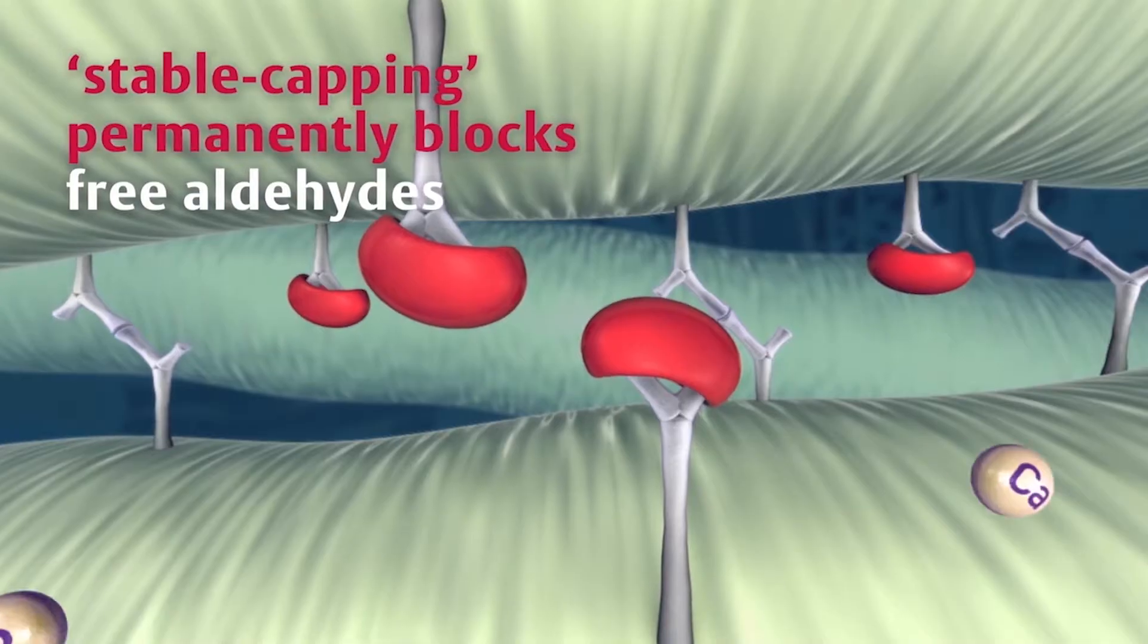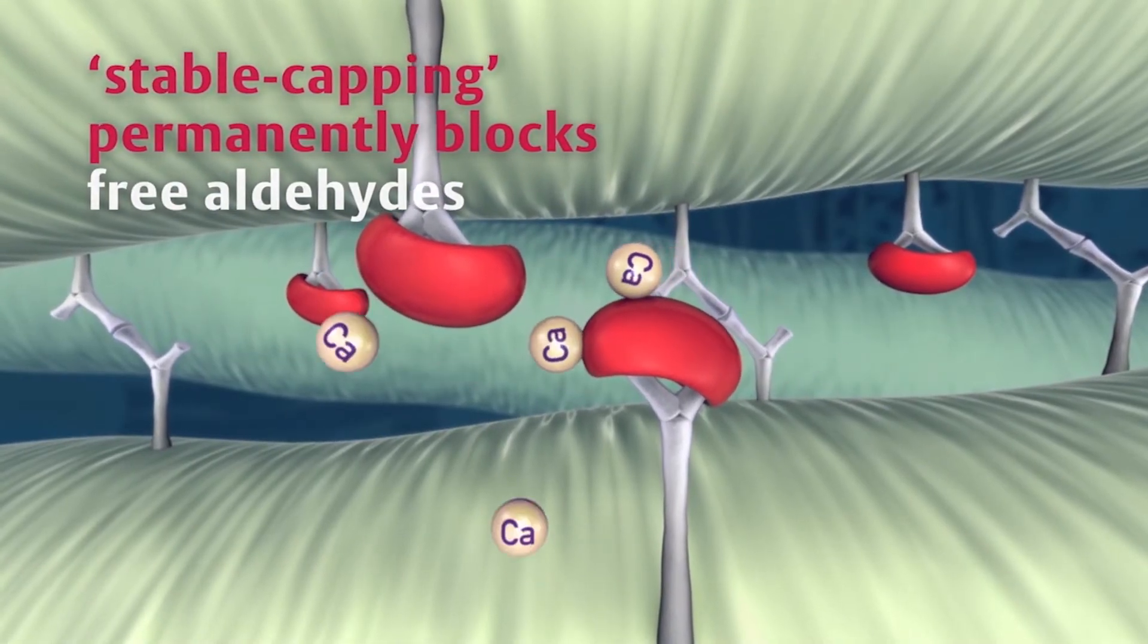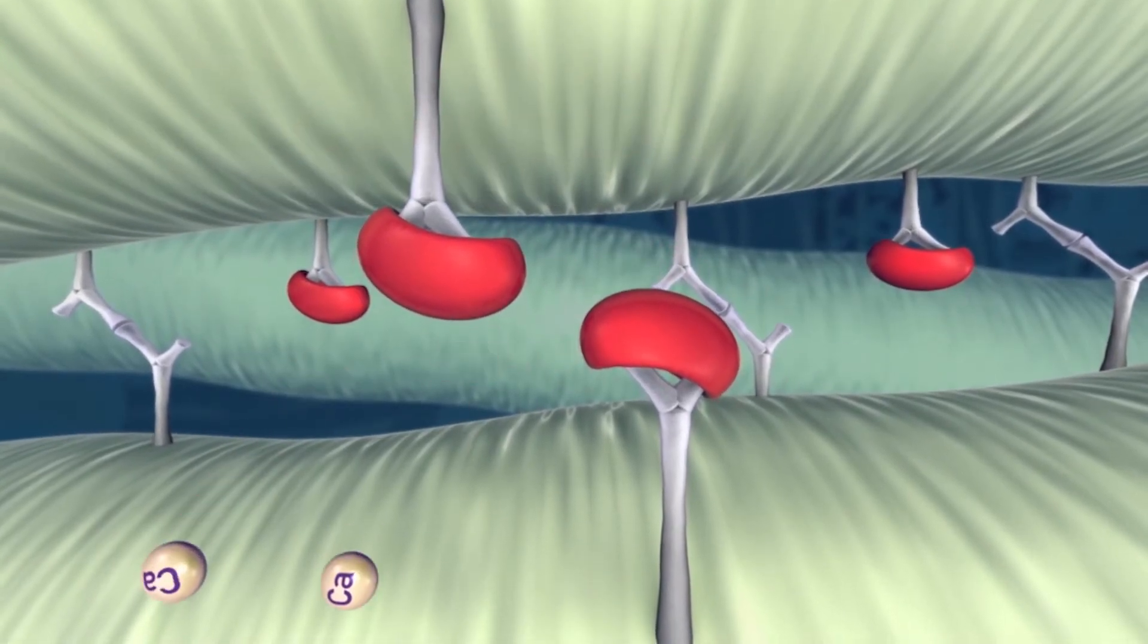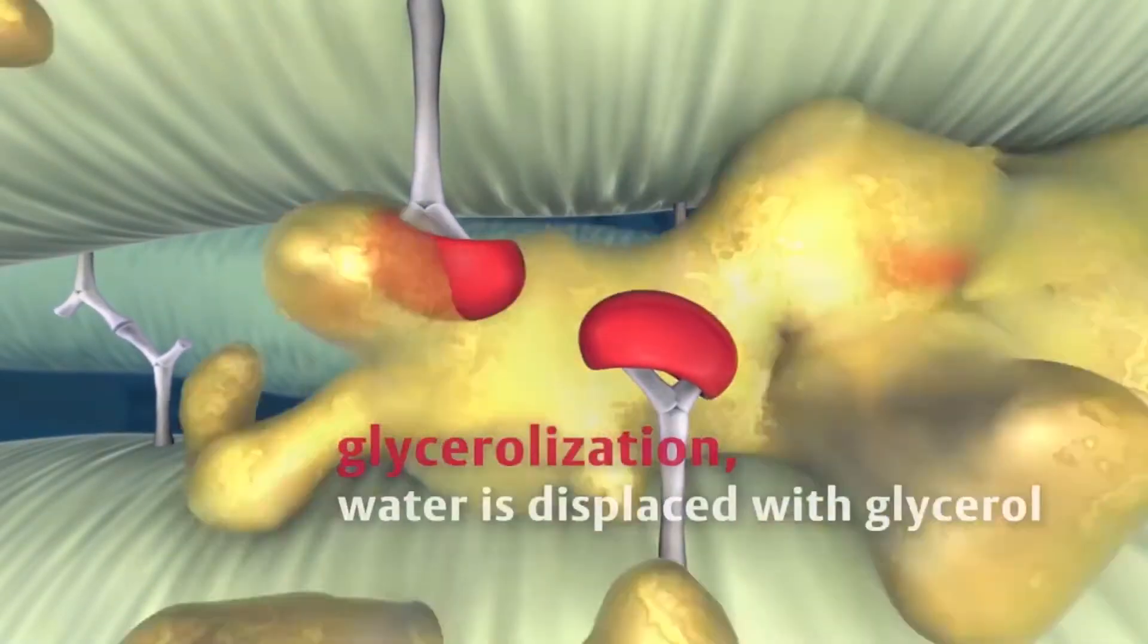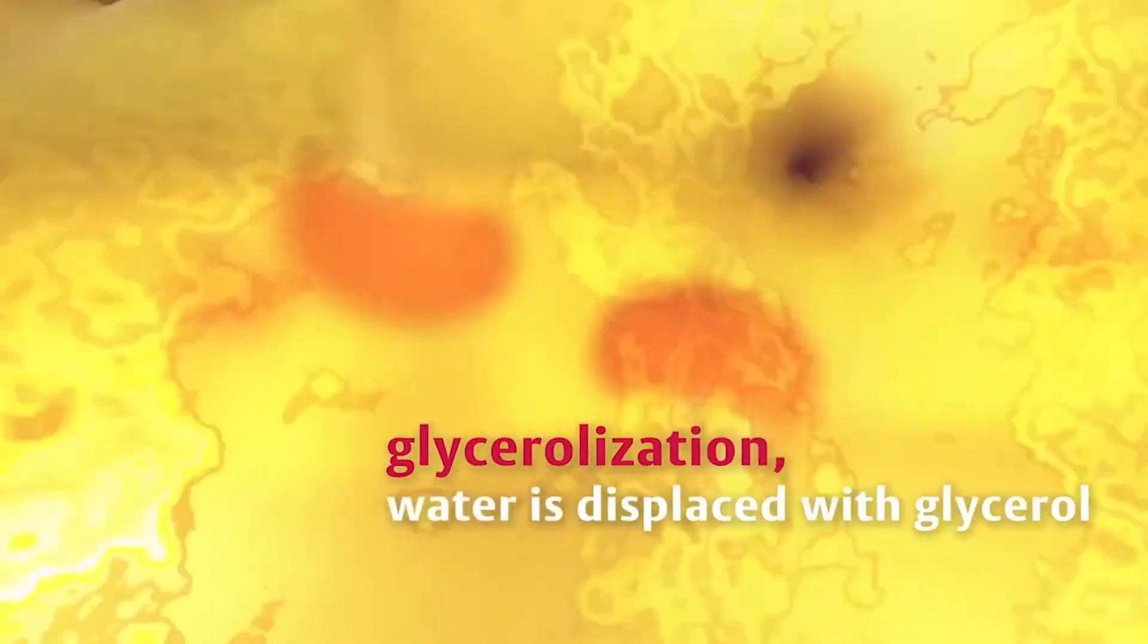Hi, I'm Angela De La Fuente, Director of R&D for Tissue Center of Excellence. Resilia Tissue is built upon our proven tissue technologies with the addition of a two-step process to block aldehyde calcium binding sites while also eliminating the need to store the device in glutaraldehyde solution.